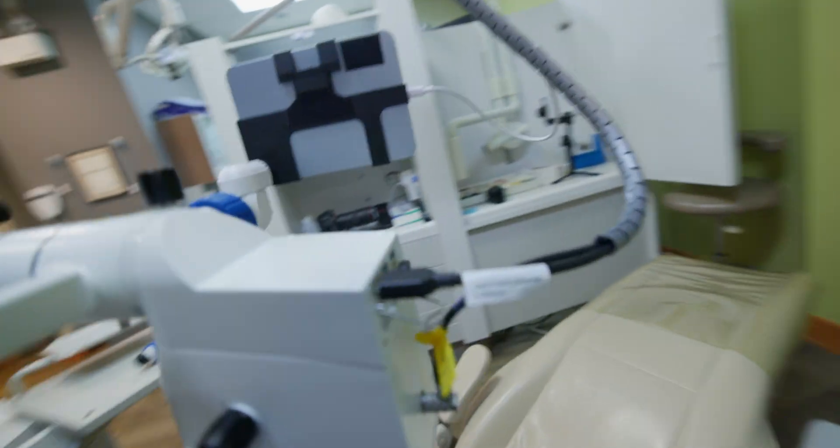I'm really, really thrilled with the microscope. Getting it ceiling mounted was a bit of a rigmarole, but once you have that done, it is really nice. It's a much cleaner look.